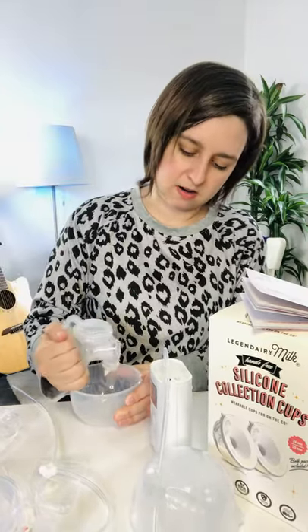This is standard tubing — you can cut it if you want it shorter, there's nothing fancy about the end. The cups are a little bulky but they're all that way, so that's nothing new. I really like these. Let's go compare them with some other cups on the market. Tell me what you think in the comments if you've used these or have questions, and we'll see you over on YouTube for that comparison!